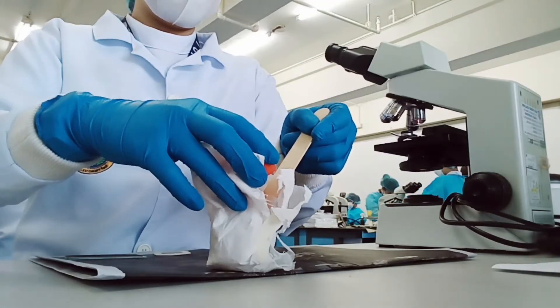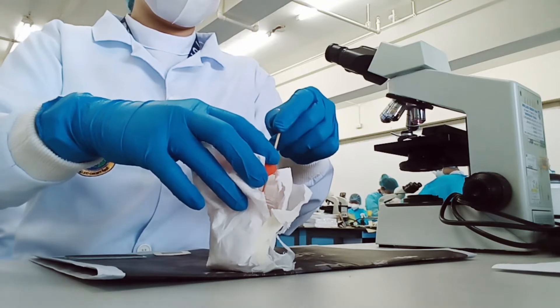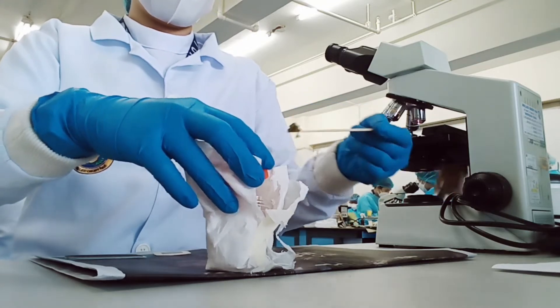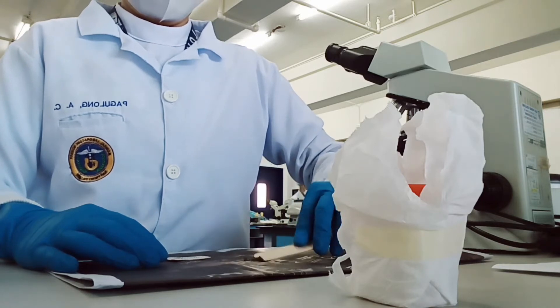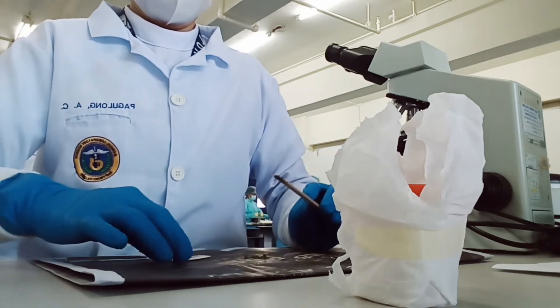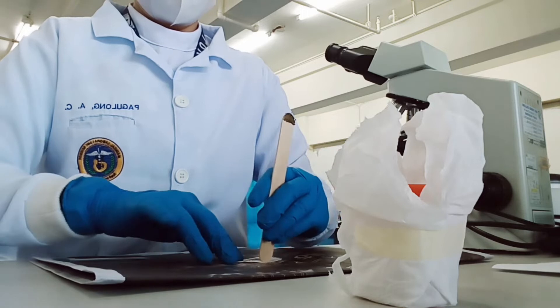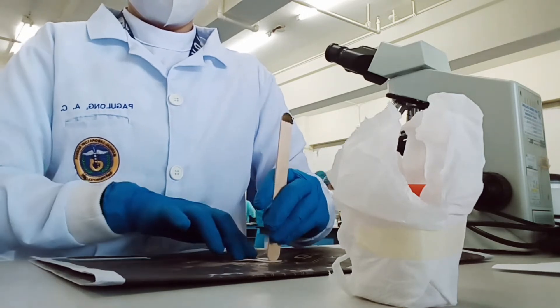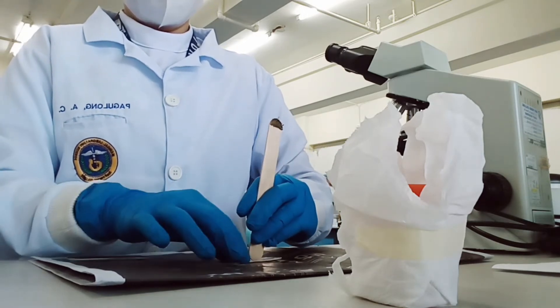Using a spatula, place a small amount of the fecal sample on a newspaper. Press a piece of nylon screen on top using the other end of the spatula to strain the fecal material.